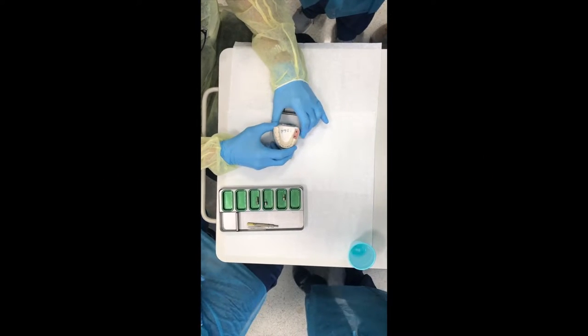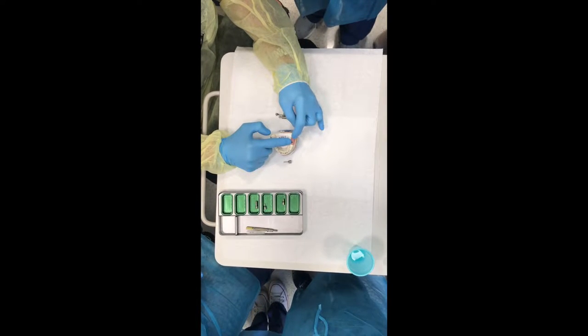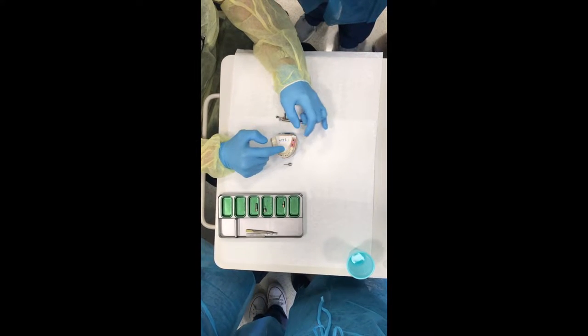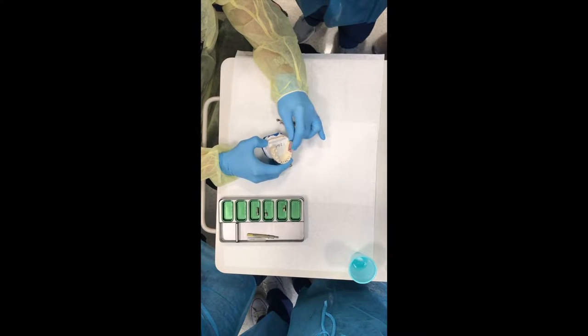All right, so here we have a Straumann splinted, screw retained, BFM fixed dental prosthesis, implant retained. And this is the master cast.